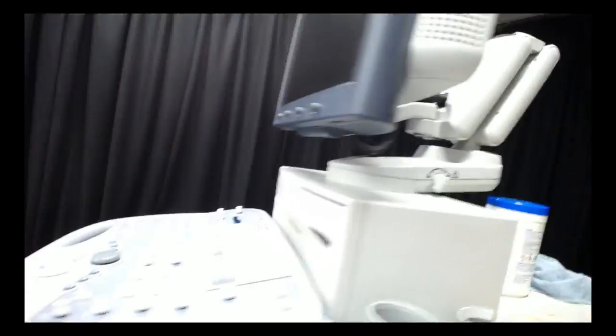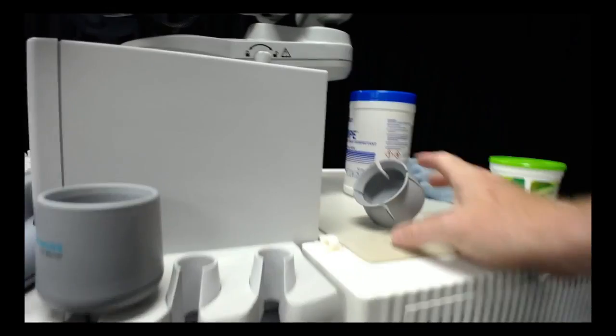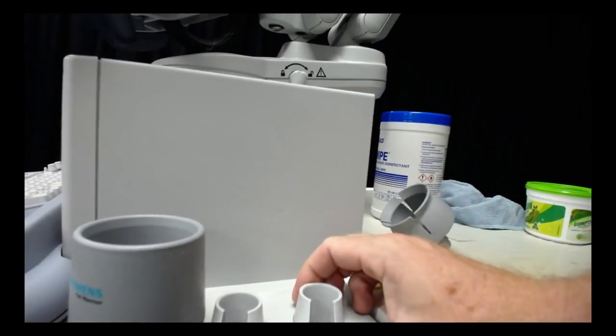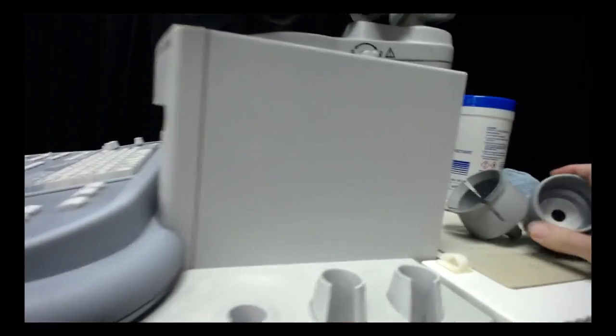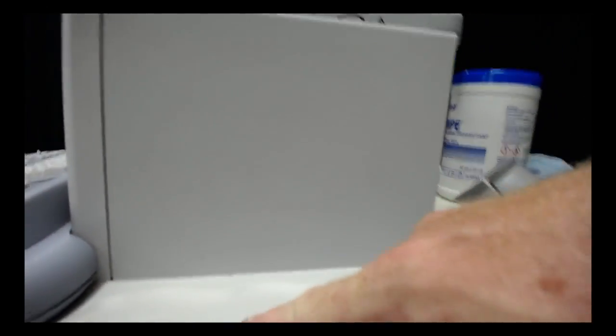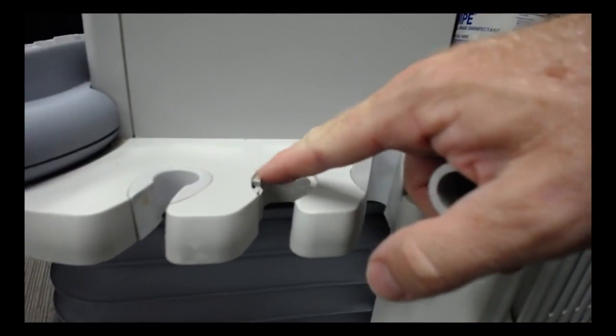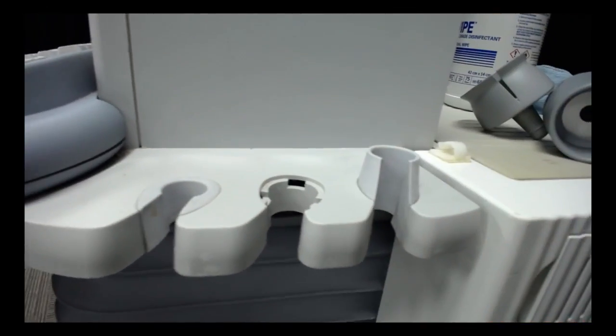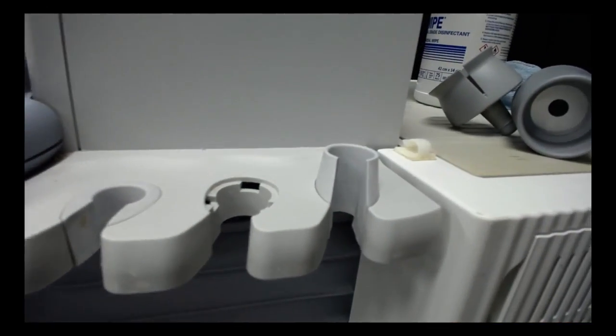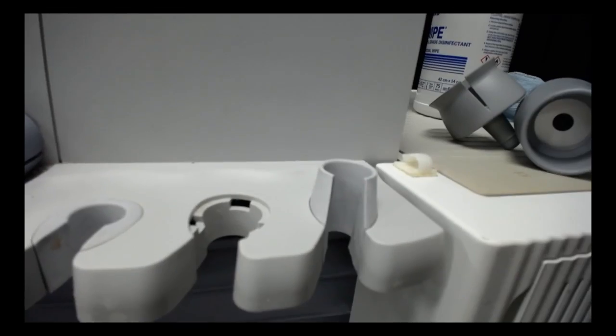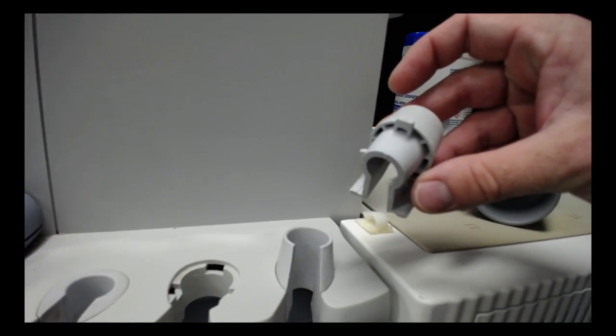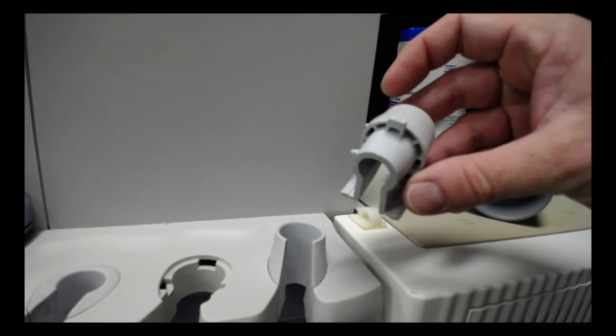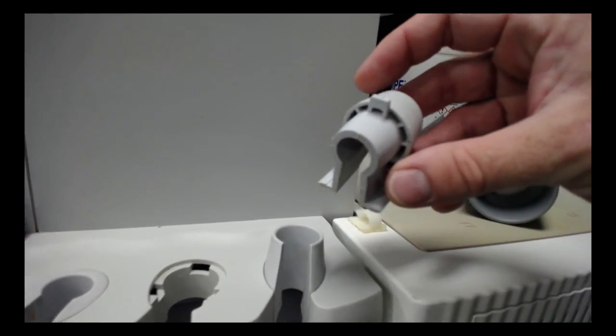I don't like all of these little things that clip in here, so we need to make sure we periodically pull that out and clean right into the cavities that leaves, as well as cleaning the parts we can pull out of those points.